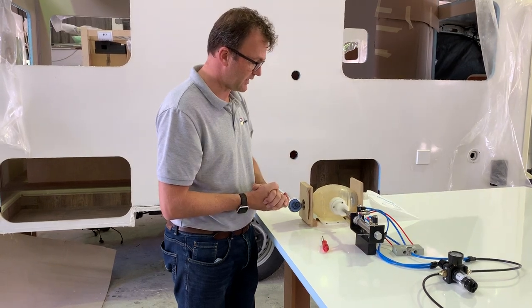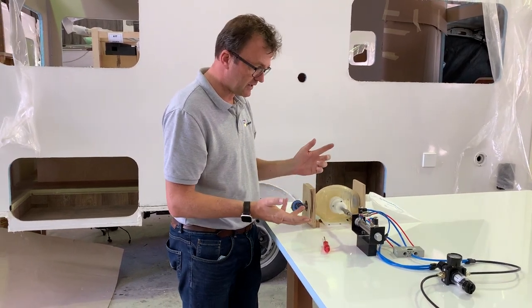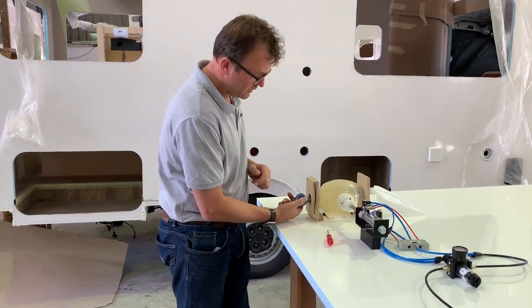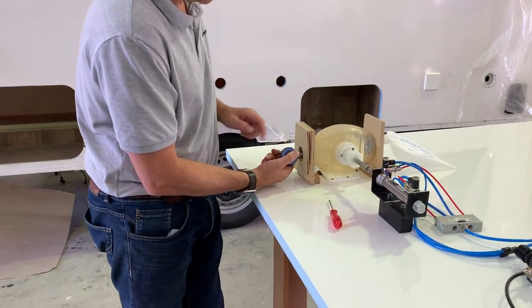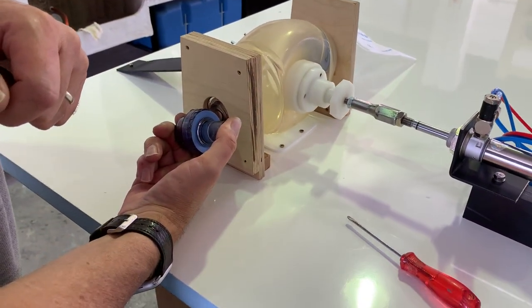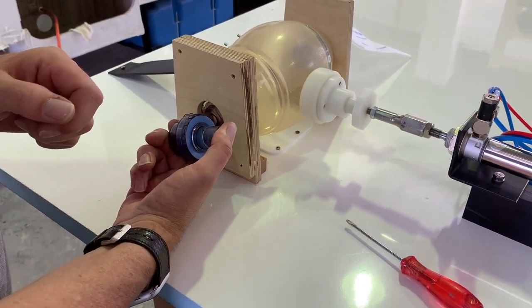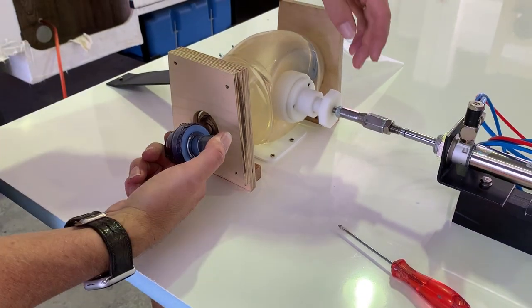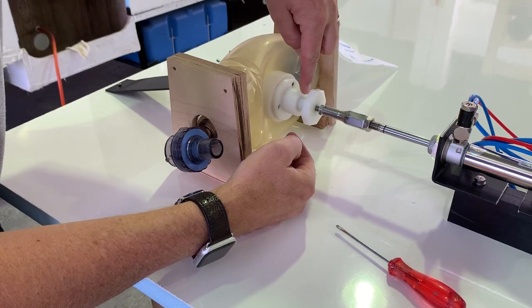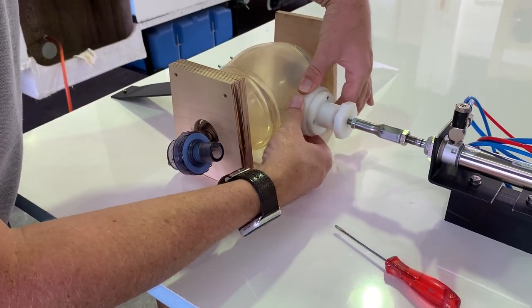So please comment and let us know, we'll take it from there. You can see it works. Even, sorry to show you, if I block the air, you'll see the stroke is a lot less. So there's obviously some adjustment that's possible also here itself as well.